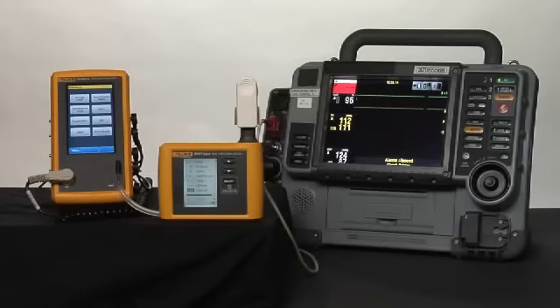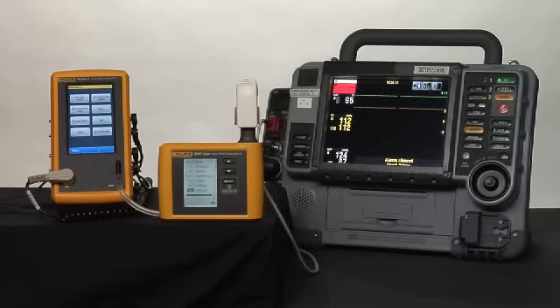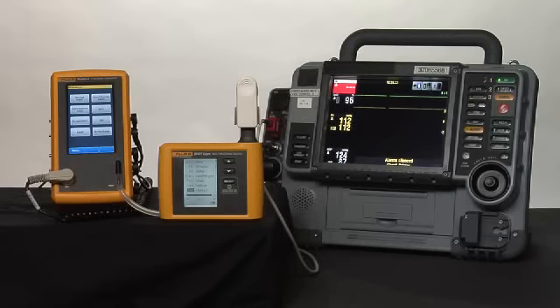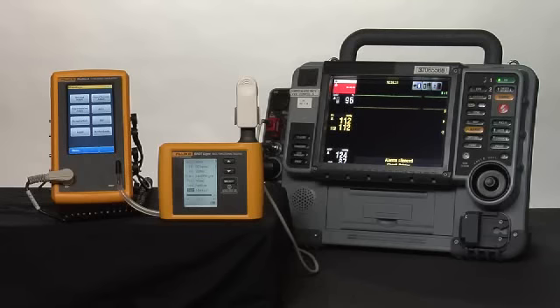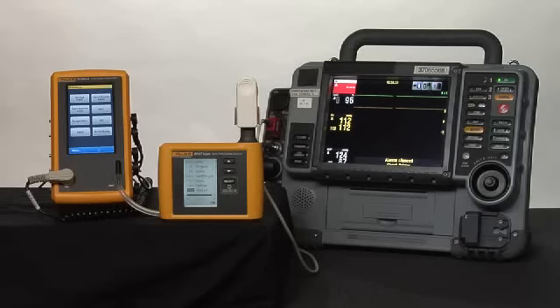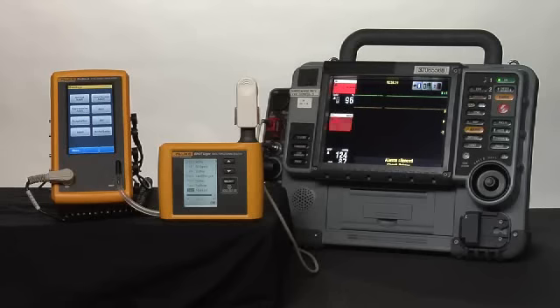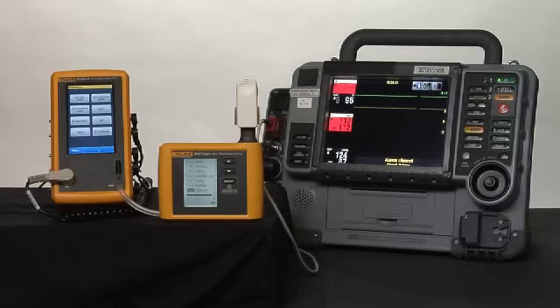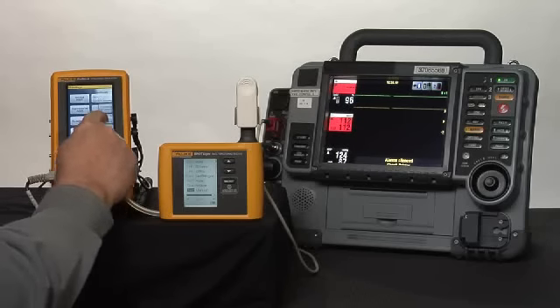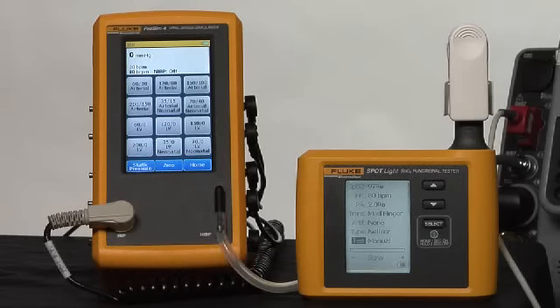Today we're going to look at a scenario where we get a call from the clinical unit that the patient monitor is not working. They're not very specific, so we need to take a pretty fully functional set of equipment up to be able to quickly evaluate whether this patient monitor is working or not working. We'll pick both our ProSim 4 and our Spotlight, and I will go on ProSim 4 first to IBP and zero.